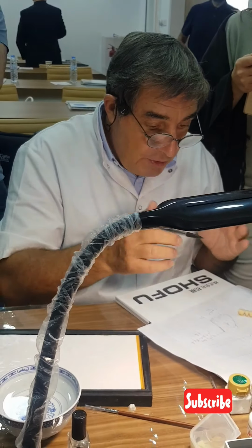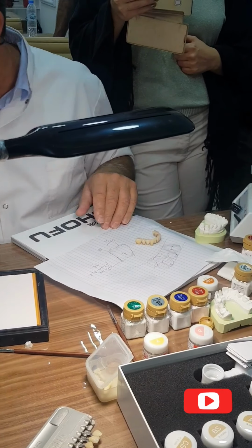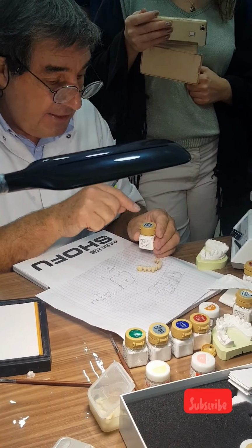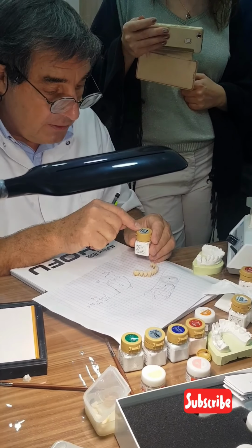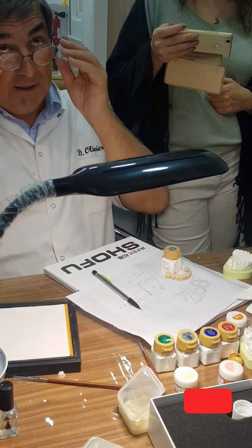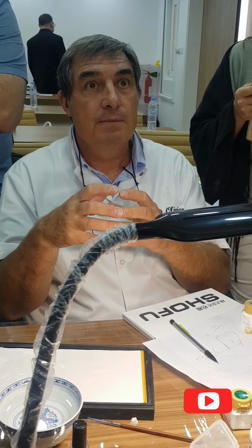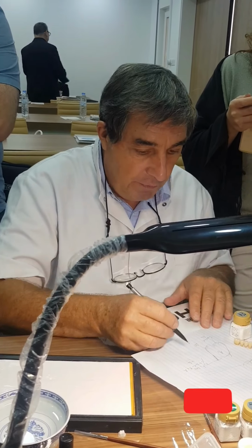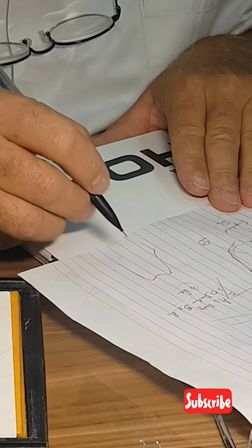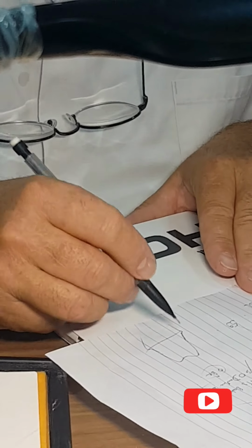Okay? And another very important material from Shofu is that one. CTA, cervical transparent shade A. It's a beautiful product. It's a product to give you deepness. You know, on that side, very often you have the preparation of the dentist, and they don't give us enough space.